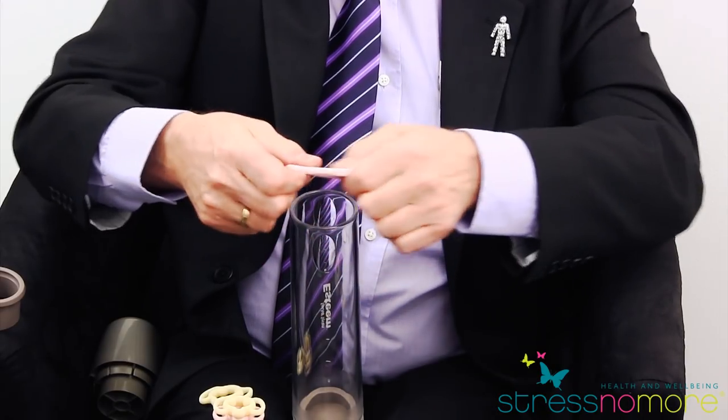Release the pump. Now if you can walk around the bathroom or the bedroom, wherever you're doing your ten minutes a day exercise, and you put this ring on and it keeps the penis firm for a couple of minutes, you've probably got the right size. However, if it starts to go down almost immediately, take that ring off and then try the pink large ring.